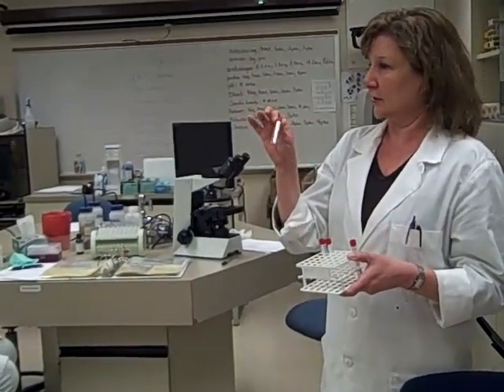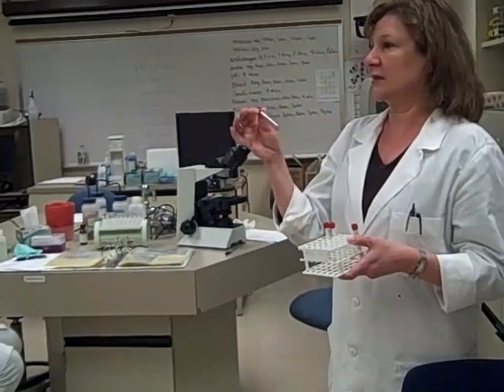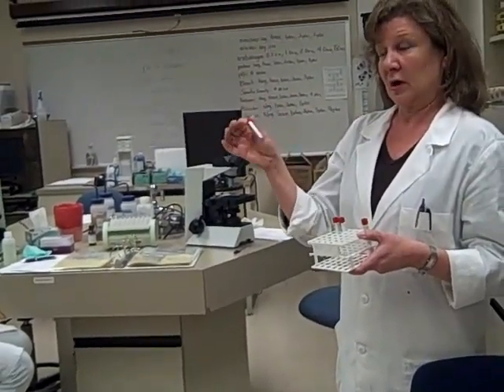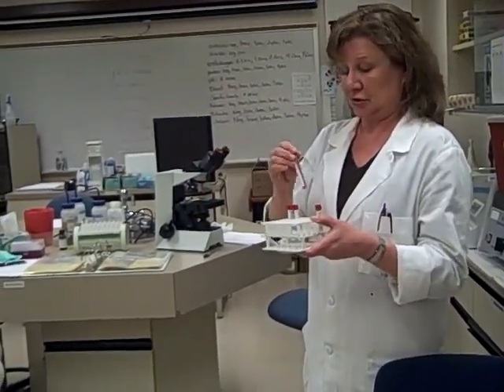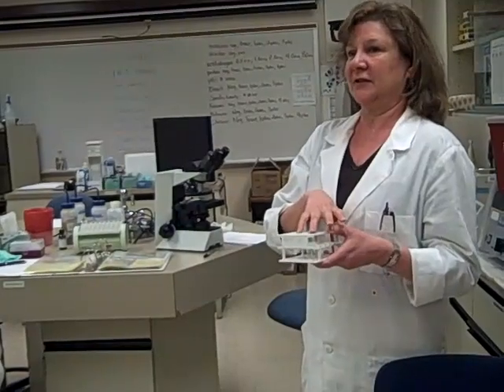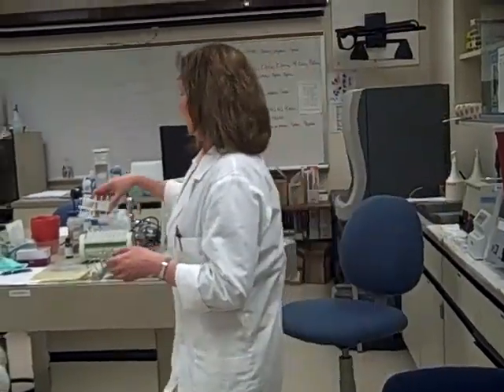With this one, with all of the red cells, you might want to consider using the smaller squares, the red cell squares in the center portion, and multiplying by 250 instead of the larger squares at 10. I haven't looked at these, so I'm not sure what they look like. When you get one plated, holler at me and we'll go from there. I'll erase the board, and we can write down our values up there, so we know how we're doing.